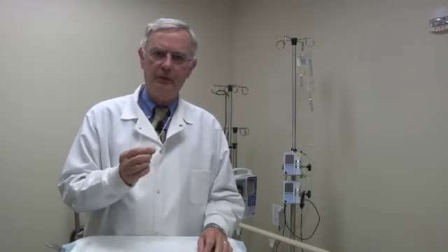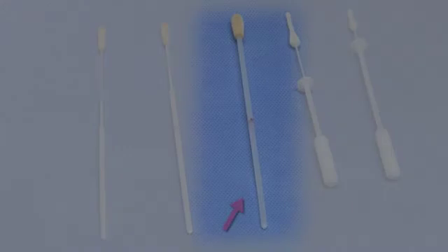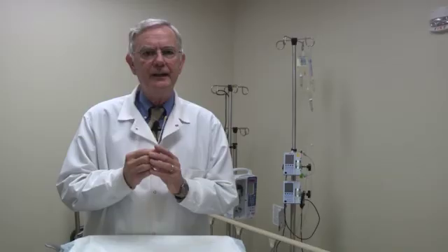This is the swab used to sample the throat. The swab is a normal-sized swab for most patients. If you're using an FDA-approved rapid test that specifies a particular swab, you must use that swab. If you change swab types with these approved kits, the laboratory must validate that the new swab is as effective as the one recommended in the kit. If a special swab is not specified, then no validation is necessary.